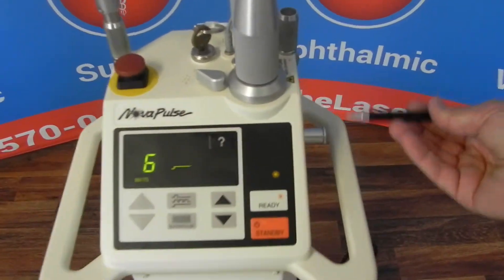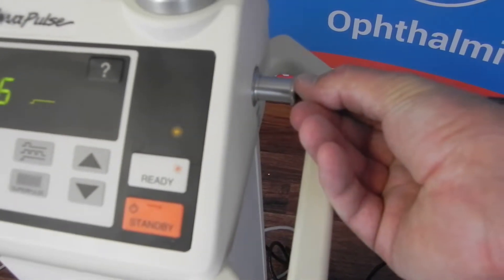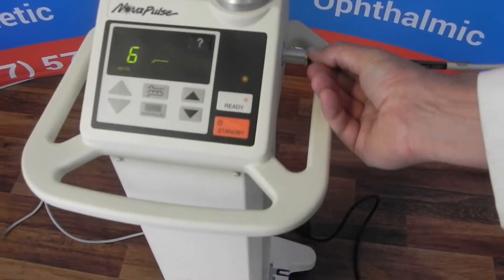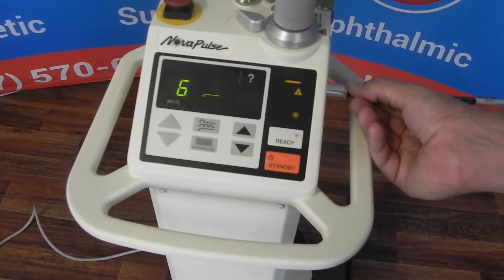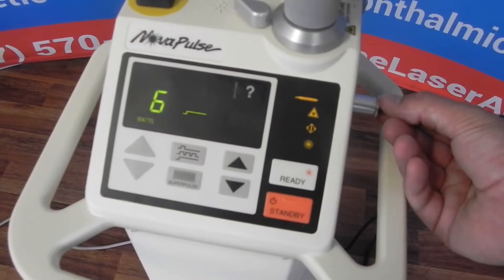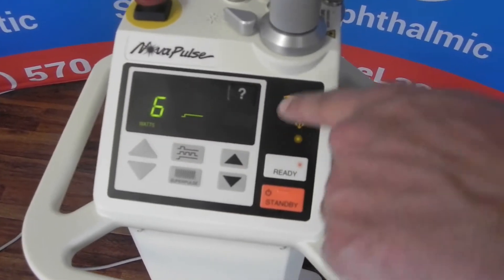I'm going to take the fiber or the hand piece and stick it into the fiber calibration port. What I do is I push it until it touches and pull it back just a millimeter or so, and kind of hold my fingers to keep it centered in that port. With it in ready, I'm going to press and hold the foot pedal down and keep holding it down — it's going to go through a series of clicks. It'll click five times and then you'll see a 'check okay' on the screen. That's when you know you can let up on the foot pedal. Check okay.